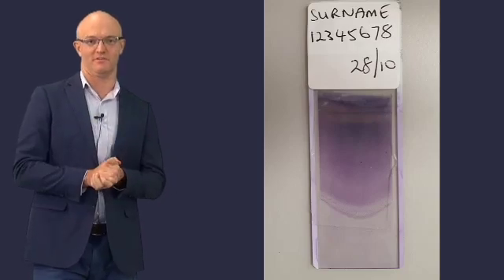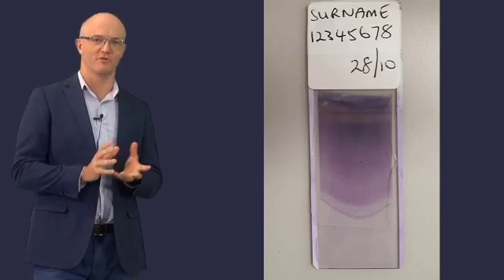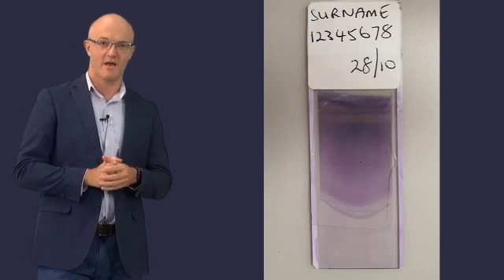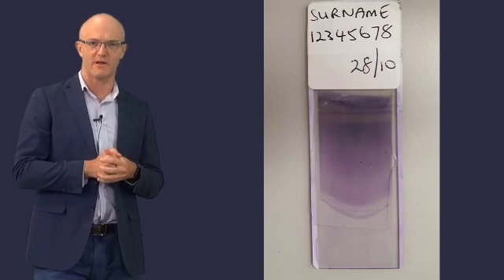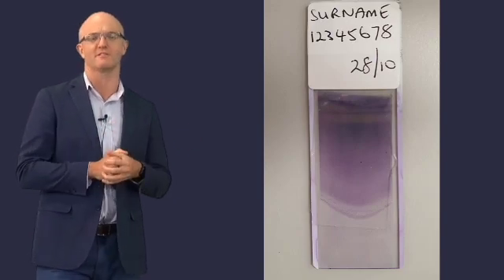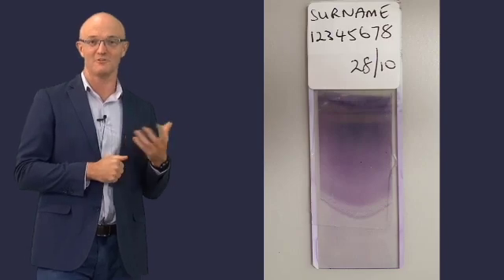In this important lecture, we will provide a systematic overview of blood film analysis. That overview will be used as the basis or template for our subsequent exploration of all the abnormal variants that we might see on a blood film. So let's get started.